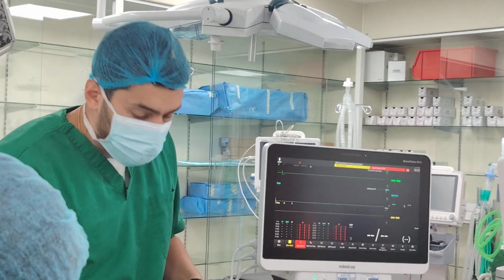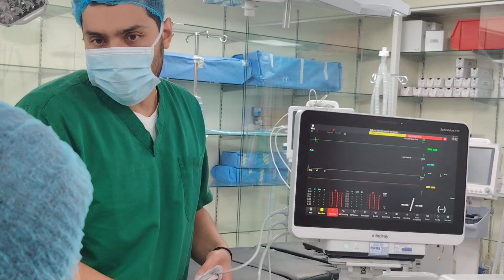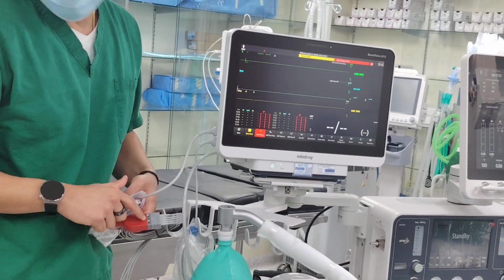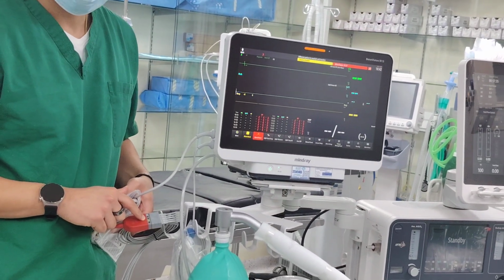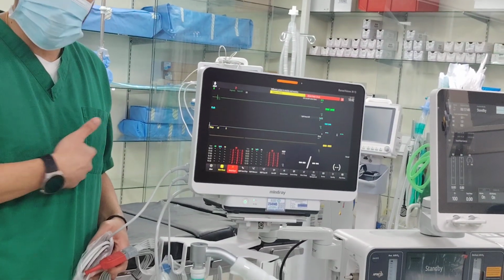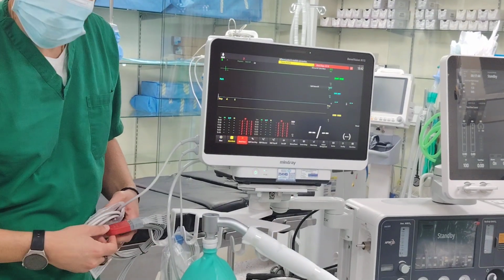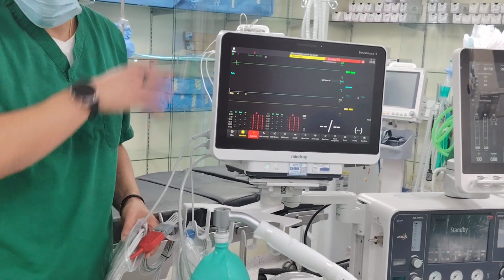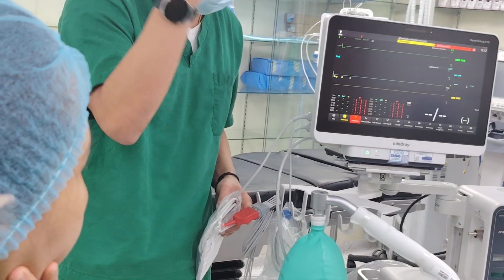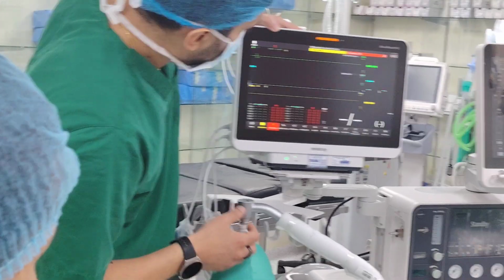That cable is very good for the cautery. It eliminates artifacts, which is very good. Okay, so your ECG is more precise. What is bad about this? You cannot get the respiratory rate. Meaning today, if you want to do local anesthesia and you want to see the respiratory rate from the ECG, this cannot calculate. You have to put the brown one, the gray one. Okay, it's not just Mindray. It's all machines that have something called ESU, electrosurgical unit, for the artifacts. Okay, so that is one.